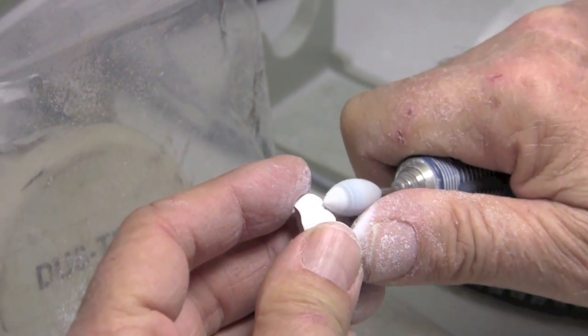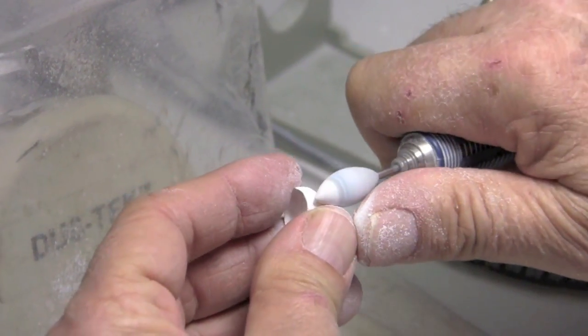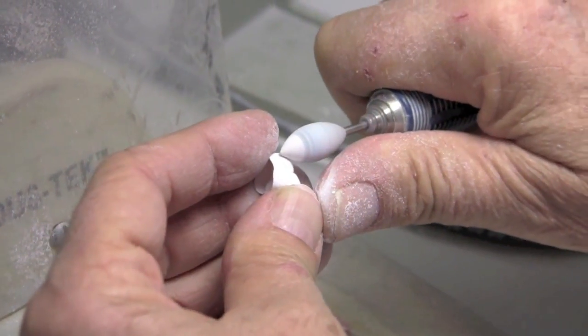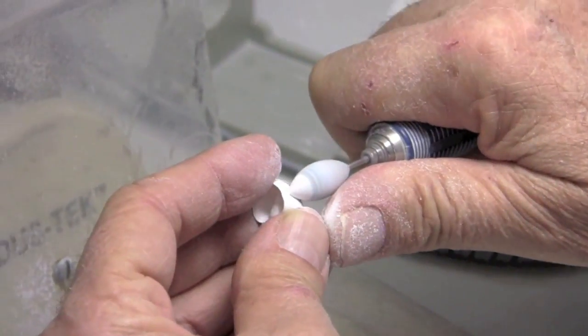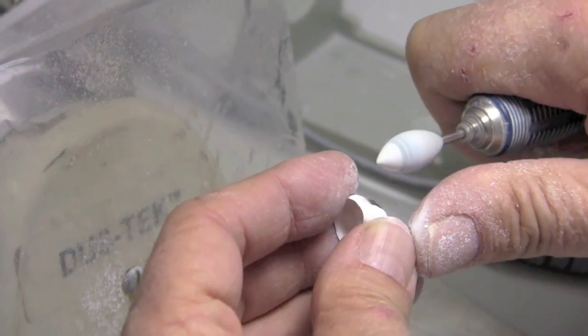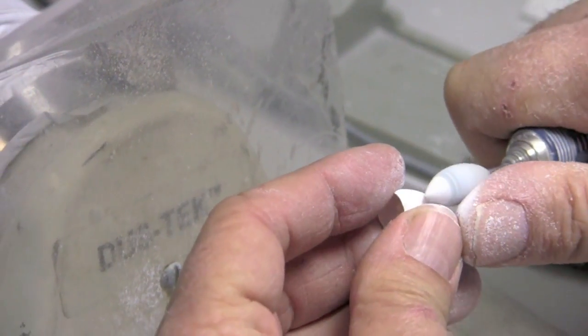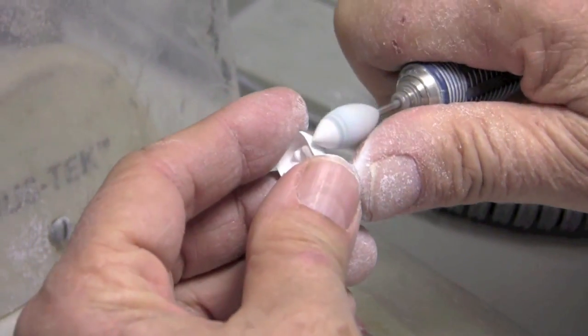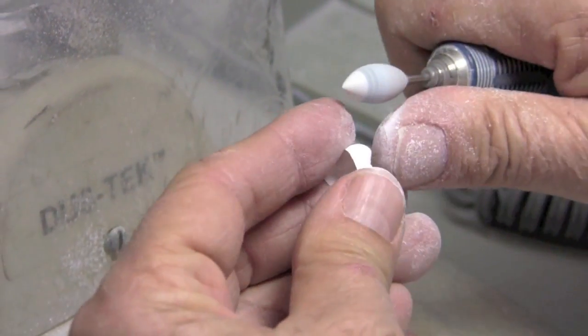And then really I should have some nice facial anatomy existing. Some little lobe development, things like that on the buccal cusps. In the developmental groove, maybe in the furca if I've got one. That really, I just want to enhance and smooth. I really should not be carving anatomy in. That should be done in the design. It should be done in the mill.